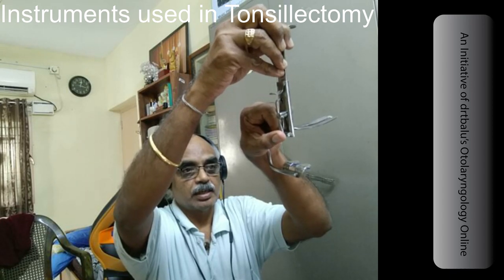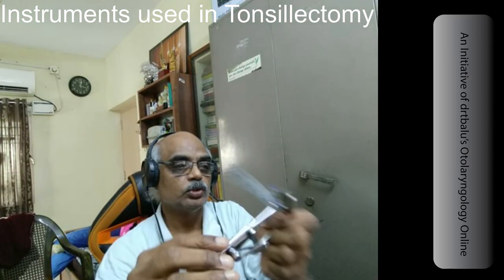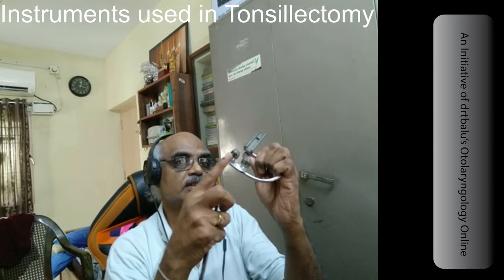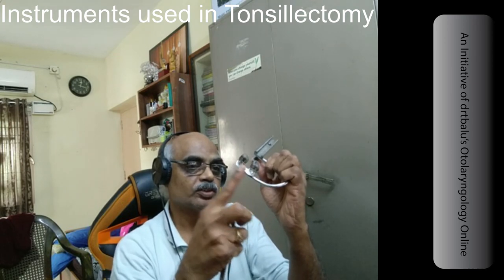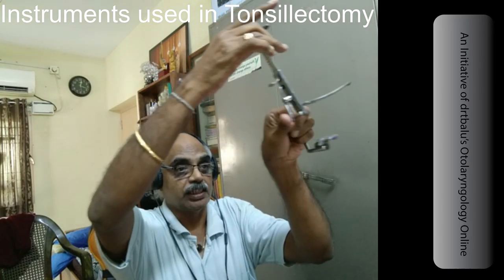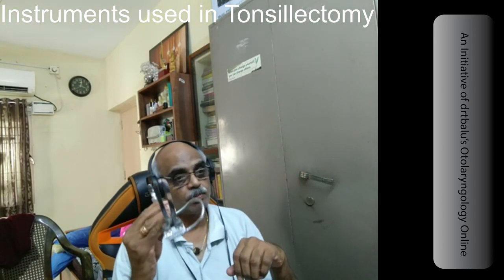By pressing you disengage the lock; by releasing, the lock gets set. These two prongs should be protected by soft rubber padding, as they will be resting on the patient's incisors — if you don't put a rubber protector, there is always a chance of the patient's teeth being damaged. To assemble the Boyle Davis mouth gag: press the engaging lever, drop the tongue blade into the slot, then disengage it.